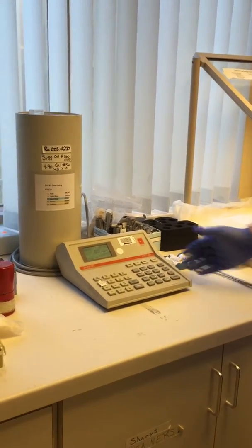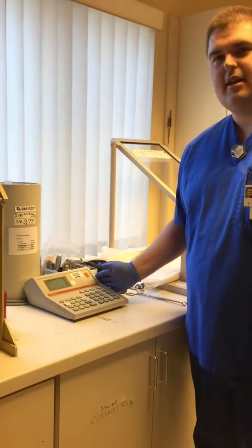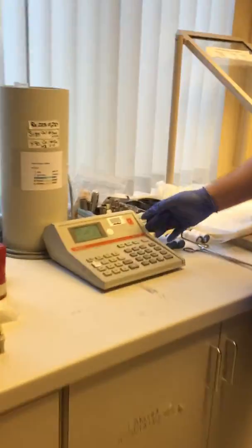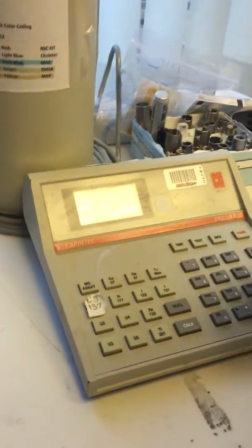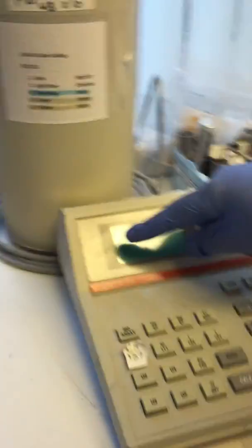Go ahead. Okay, so we're going to perform the dose calibrator constancy test now. In order to do that, we're just going to push test, and this has the different tests we can do. We're going to do daily, so that's one. So we're going to push one.